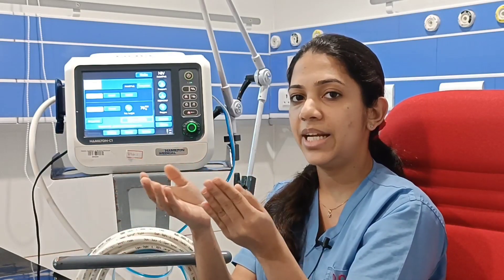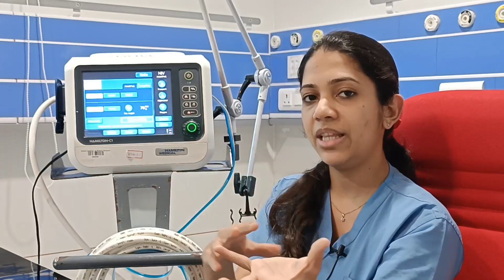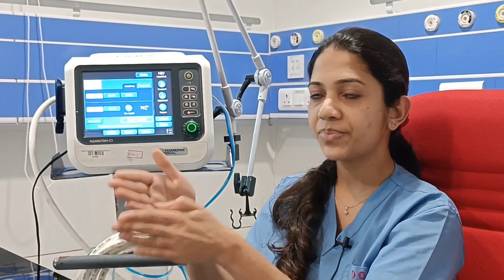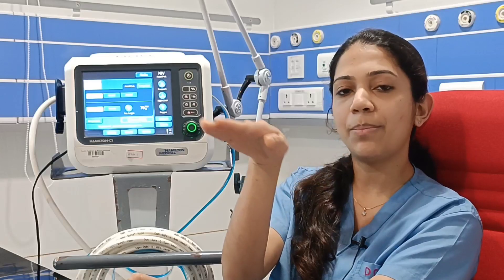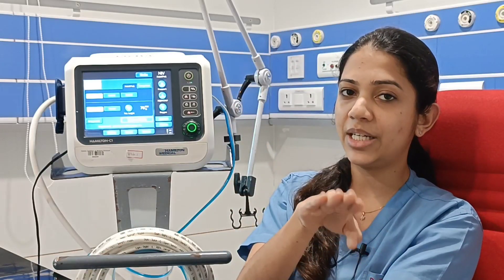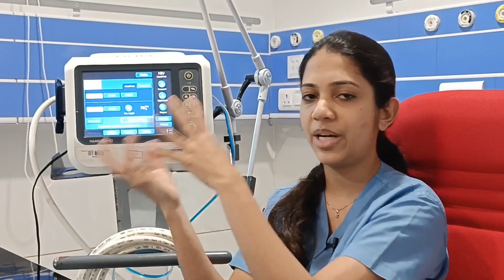Depending on the respiratory rate set, the ventilator gives the pressures accordingly. If the respiratory rate is set to 16, the ventilator delivers that pressure. During inspiratory time, it gives one set pressure — if set at 20, that pressure is maintained during the full inspiratory time as a plateau. The expiratory time is longer than the inspiratory time, and during expiration only the PEEP pressure remains. PCV mode is a time-triggered, pressure-limited, and time-cycled mode of ventilation.